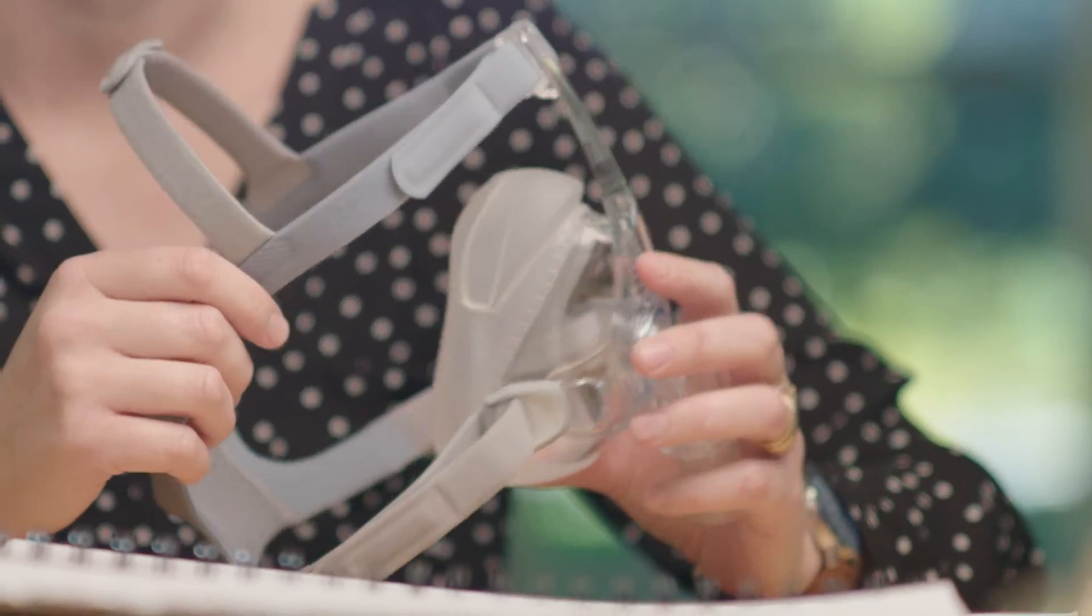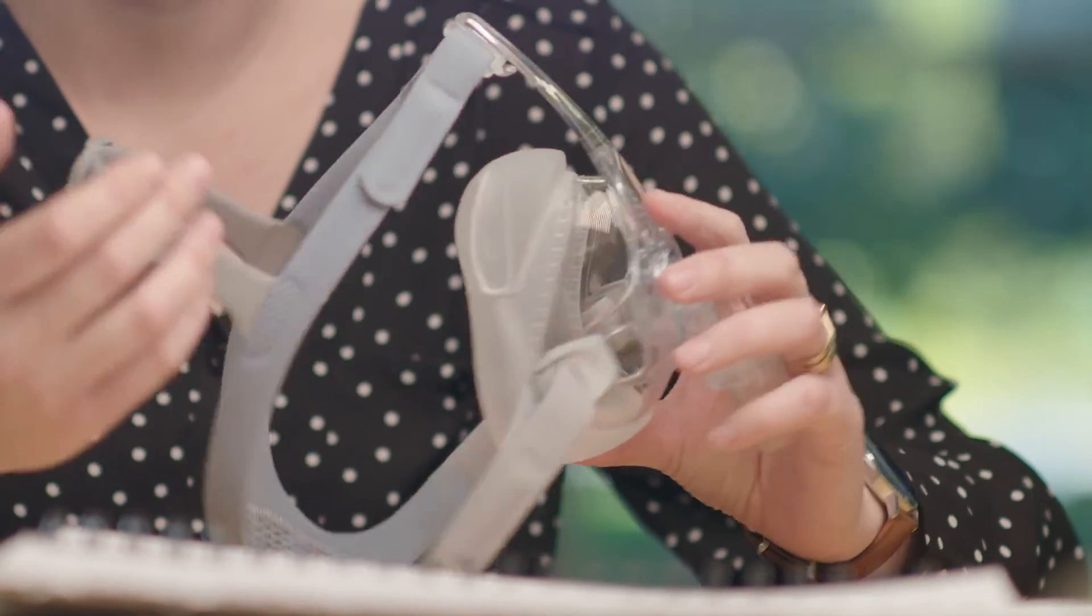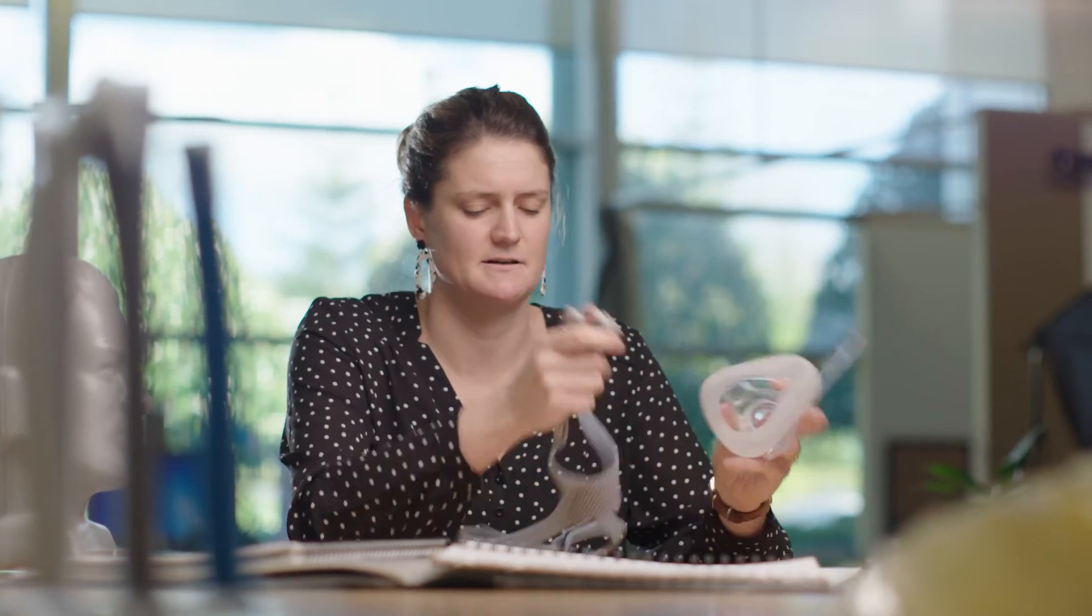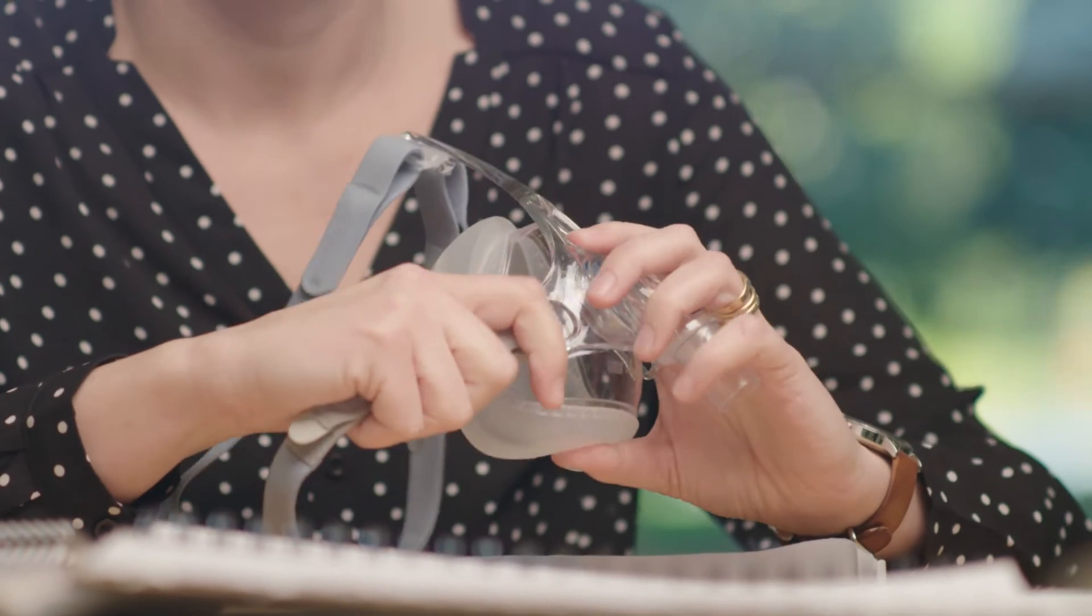The three-point headgear—I think that was quite a big usability gain for the full face mask. It makes it a lot easier for cleaning, so patients can just take it off and then reassemble it quite easily.